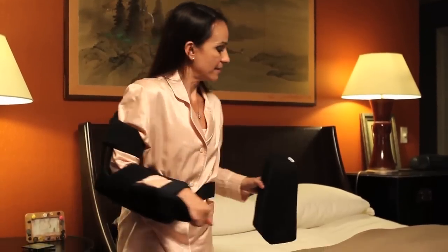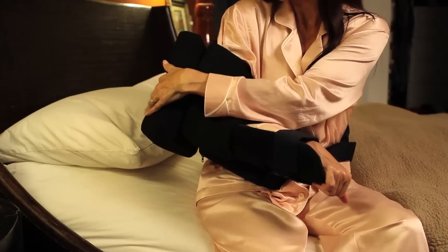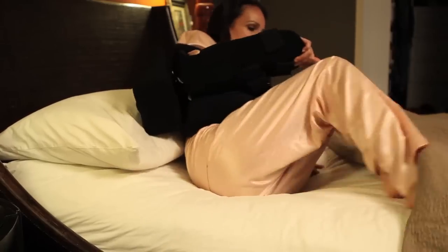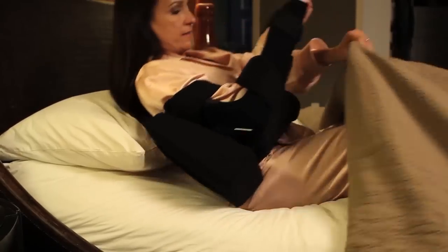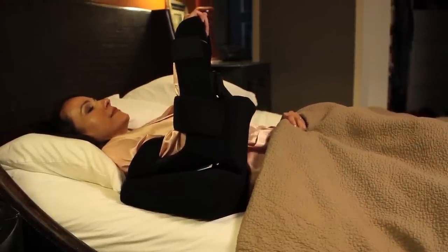The Shoulder Cradle is specifically designed to provide proper support and alignment while sleeping. For back sleeping, use the smaller wedge-shaped bolster. Attach it to the back of the cradle via the velcro strap, with the fat end of the bolster facing down towards the elbow. Then while laying down, proper support is provided in a properly aligned position.